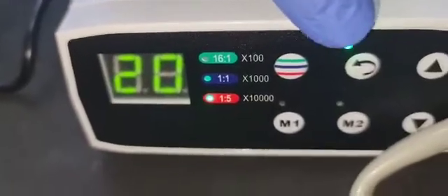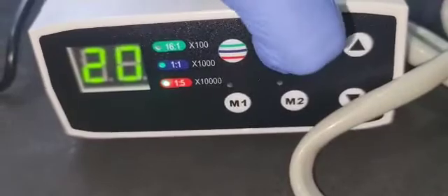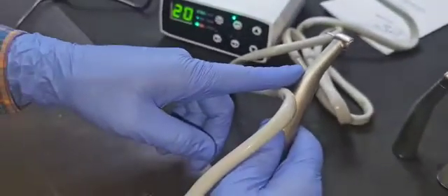So this is the control panel. Once you press this arrow, the handpiece will start working directly. If you press this again, it will stop.